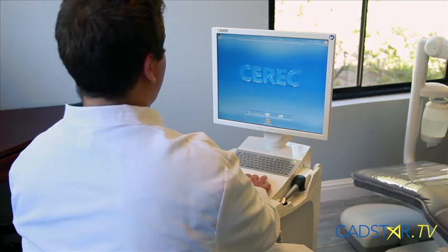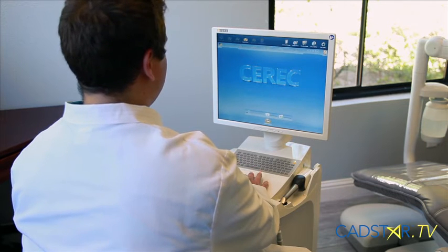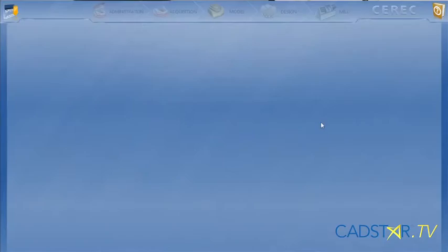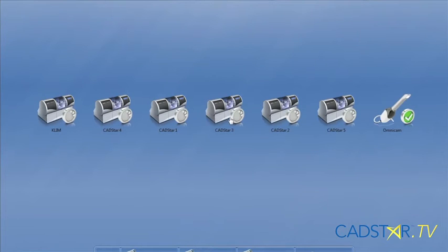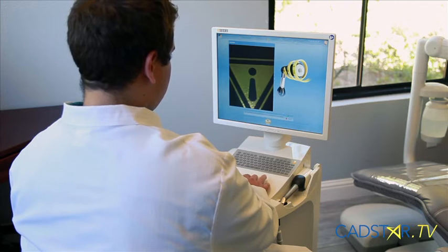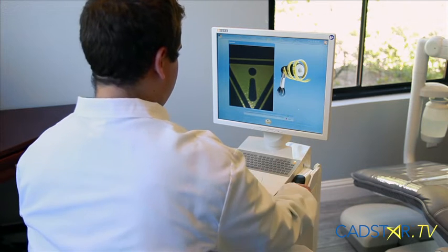Go to your desktop. Take your cursor on your start screen to the top of the window. Click on Configuration, then click on Devices. You'll open up the device window and you'll see on the right side your Omnicam thumbnail. Click on that Omnicam thumbnail. That will enter you into the window that starts your calibration process.